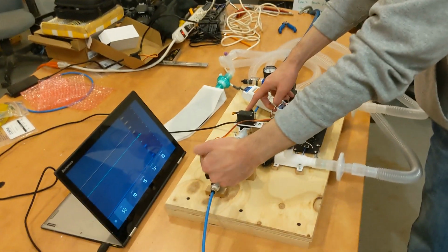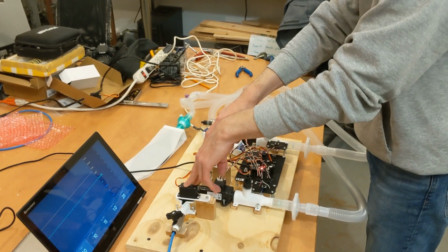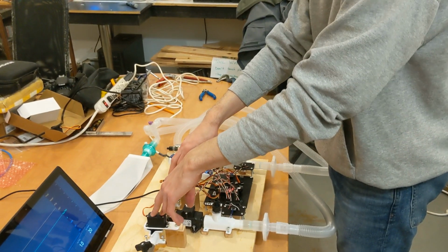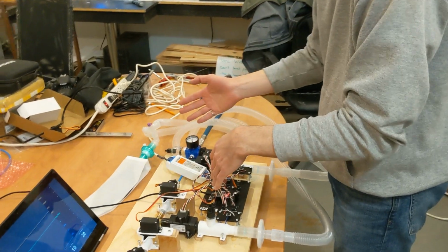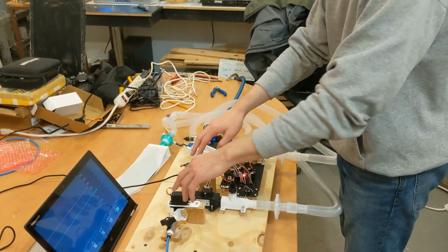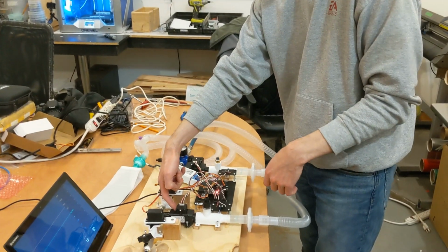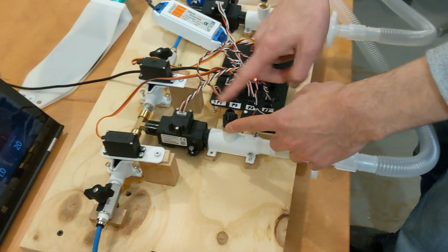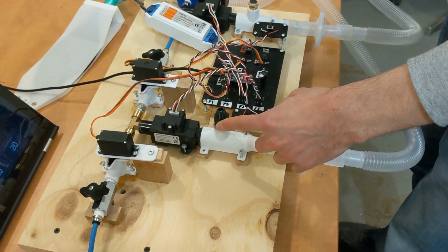Oxygen is coming in on one side, air is coming in on the other side. The next component is a servo-controlled ball valve, which the electronics control to regulate the pressure to the patient, as well as the mix between the air and the oxygen. So opening one valve more than the other will let in more air or more oxygen. The air and the oxygen mix here at the T. They go through a flow meter. Then they go to a relief valve to make sure that the pressure never goes too high at the patient.